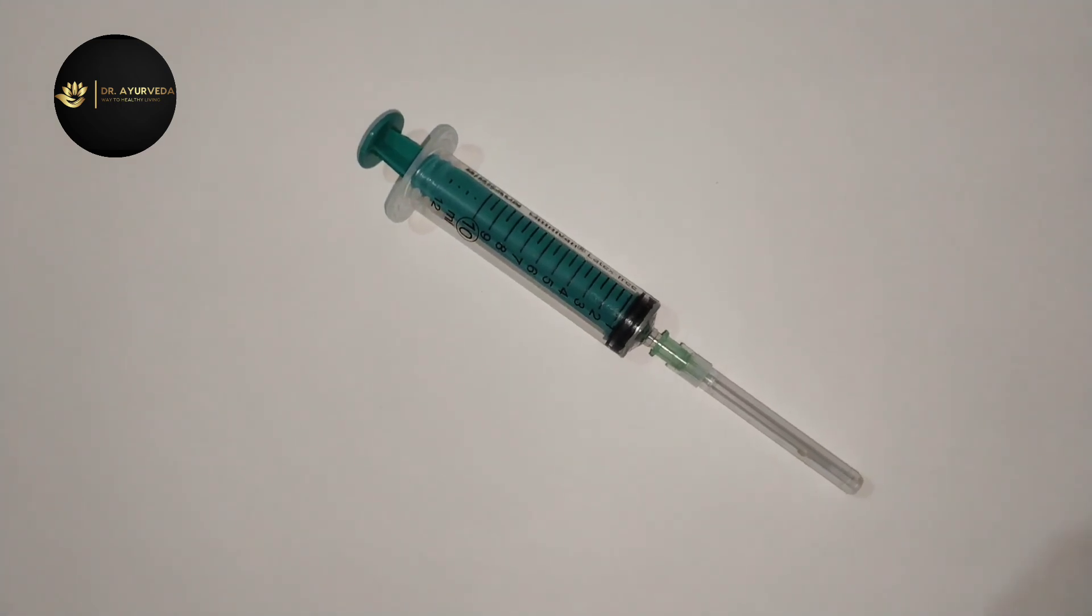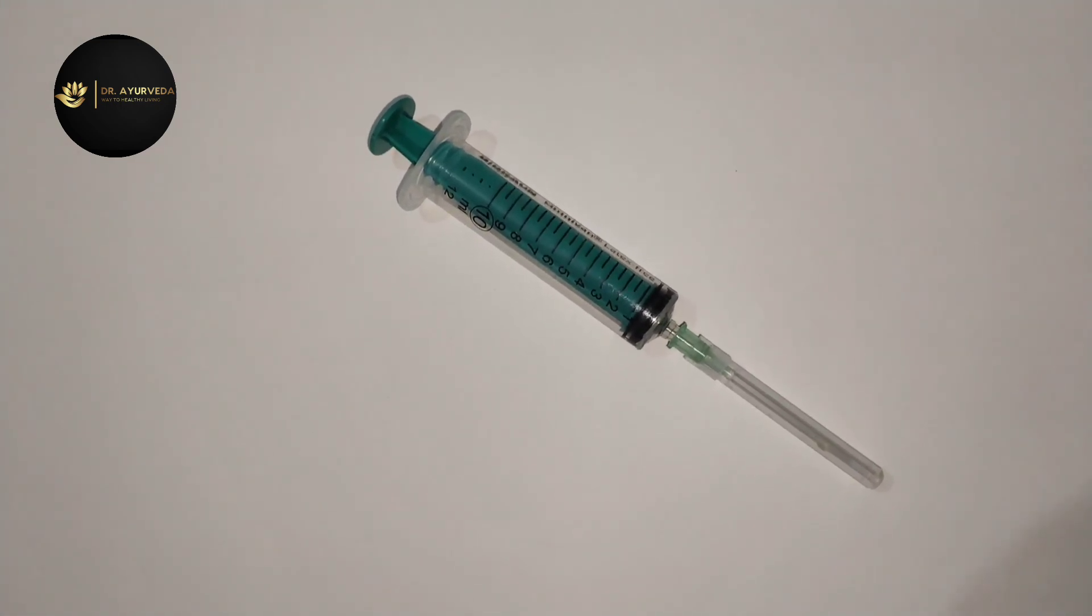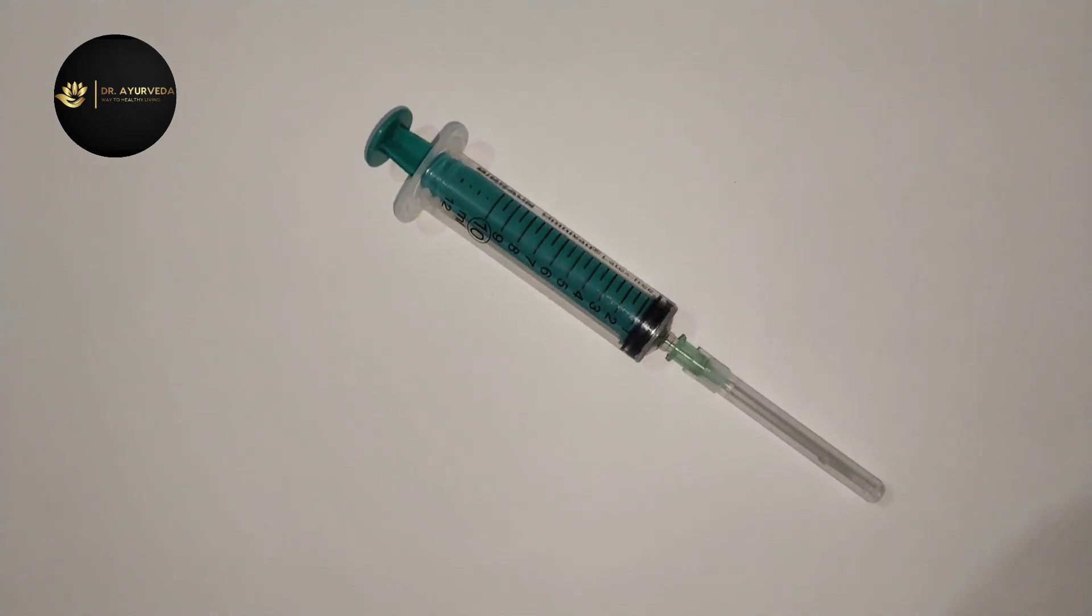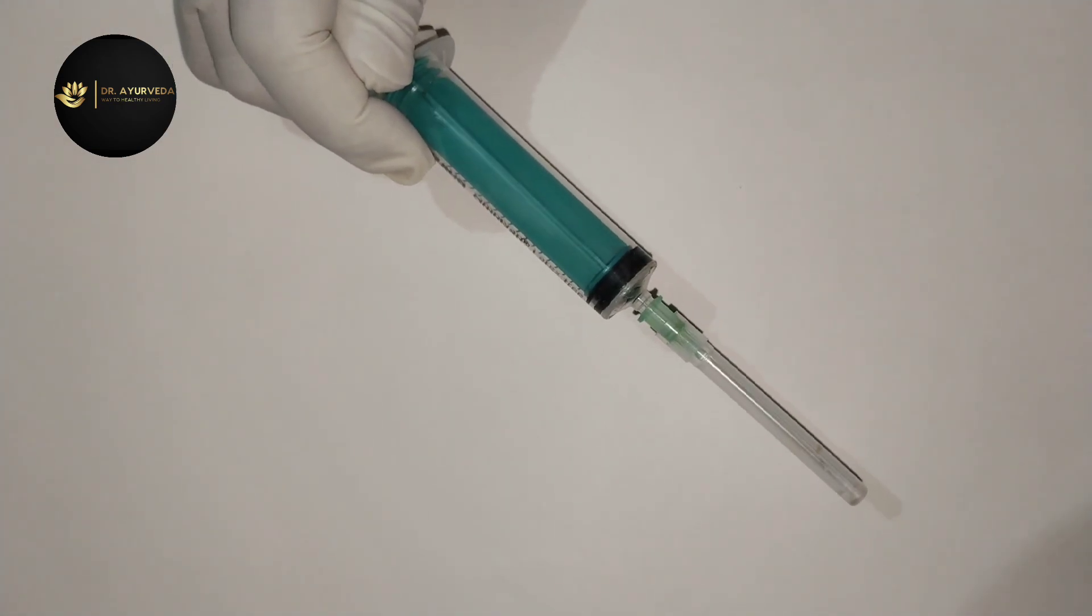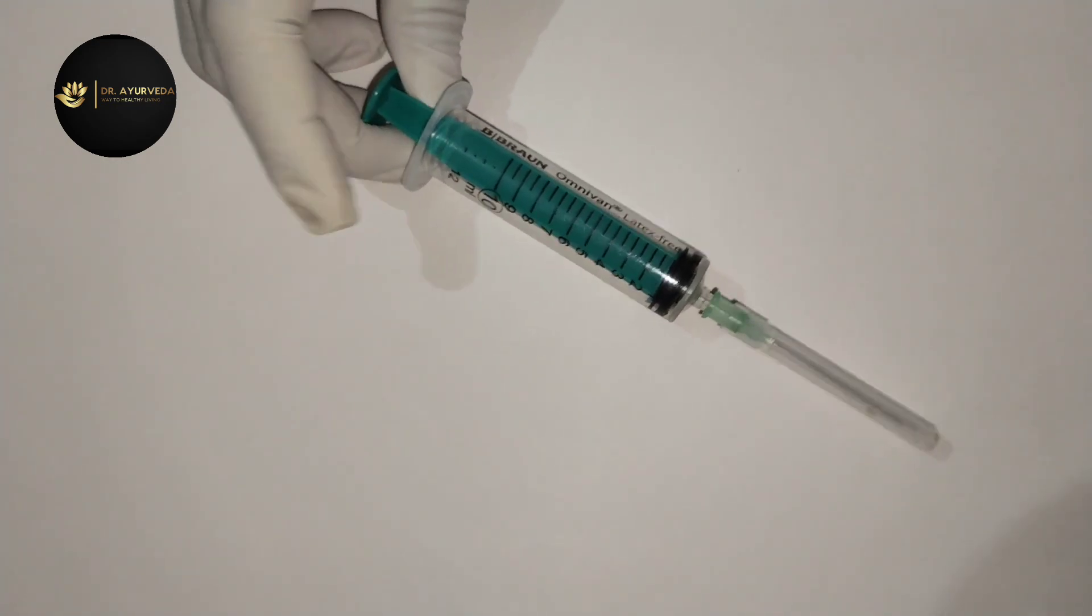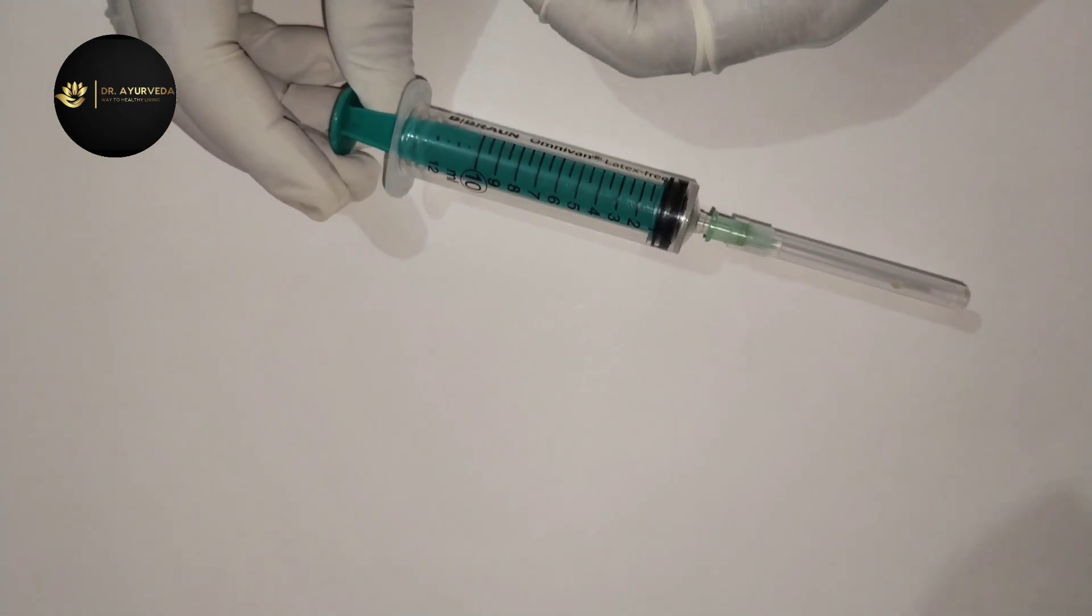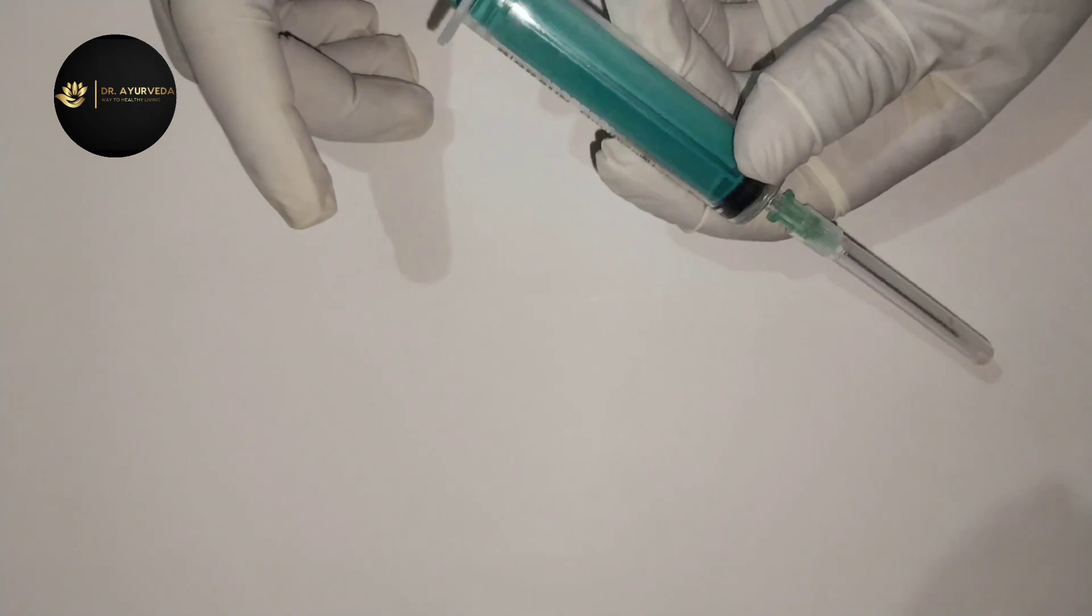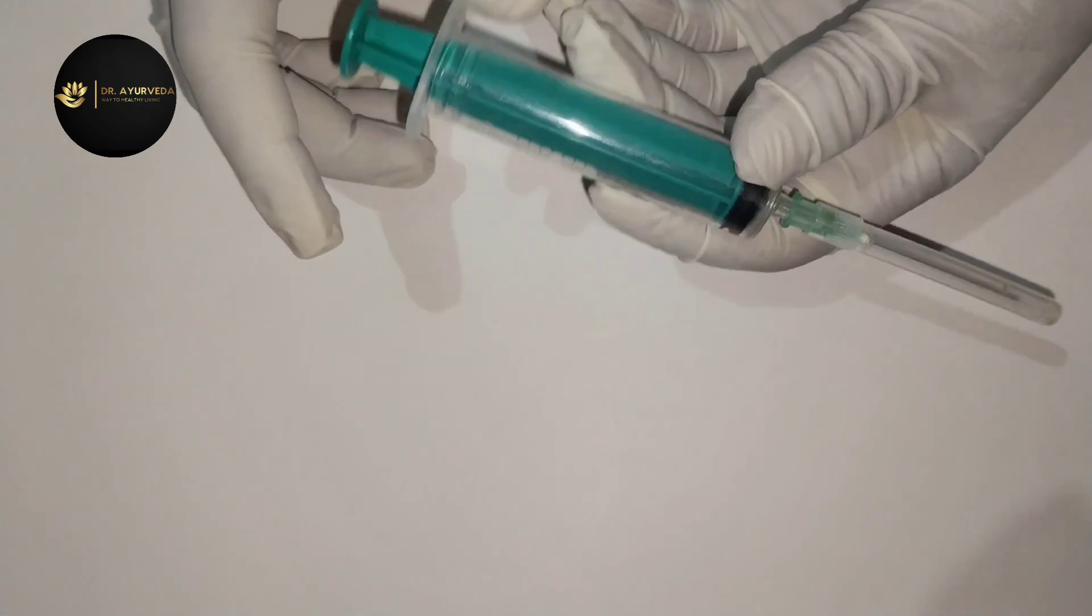Hello friends, how are you all? Today I am going to discuss a very simple and informative topic. We are going to discuss the medical syringe and the parts of this syringe.